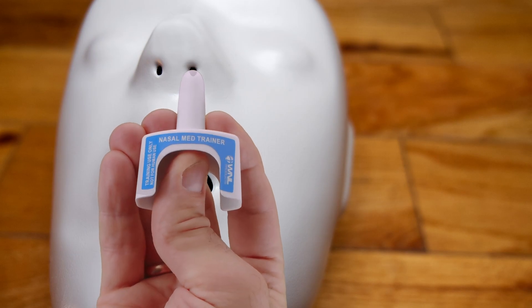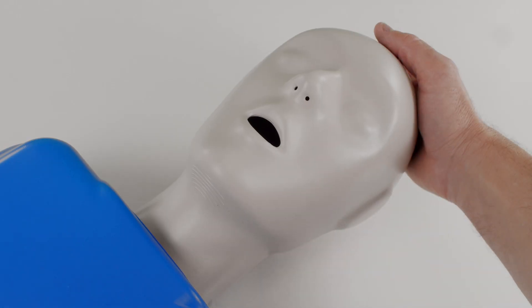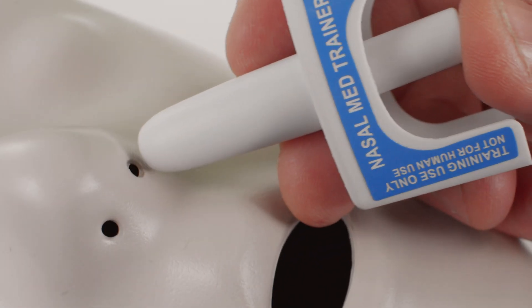Hold the trainer to the nose of the mannequin and gently push the plunger with your thumb, pausing briefly to simulate administering of the nasal spray.